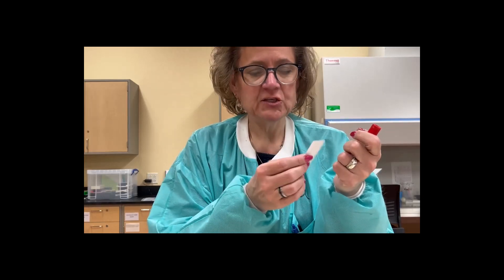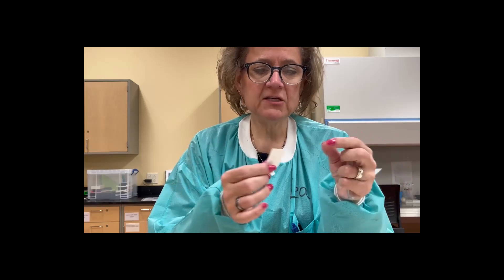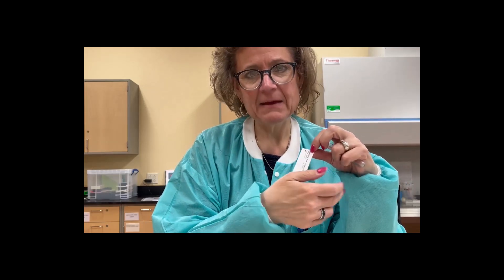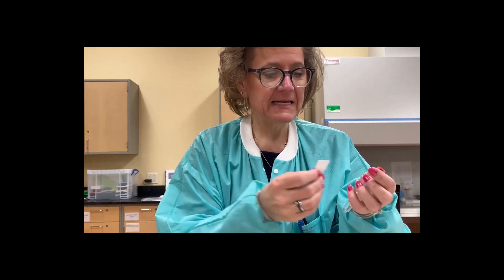The next thing when we're labeling — I have a patient here, a fake patient, so I'm not breaking any HIPAA — when we're labeling the patient name, we always take the last name towards the top of the tube. This helps us when we have racks and racks of tubes and we're looking for somebody, if we have the last name always towards the top.